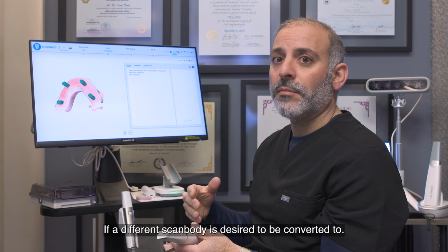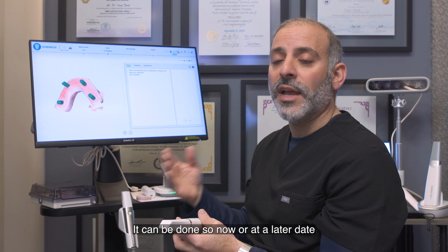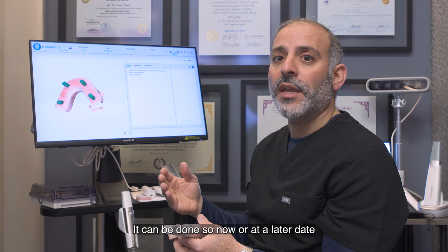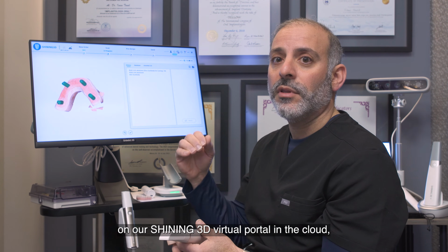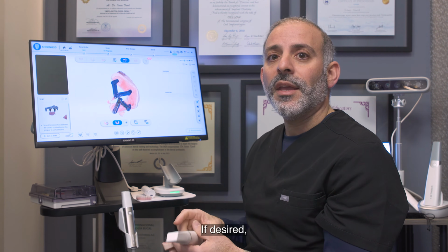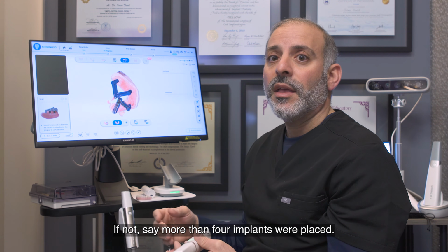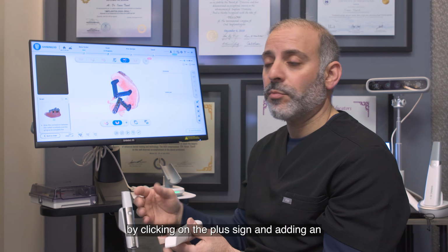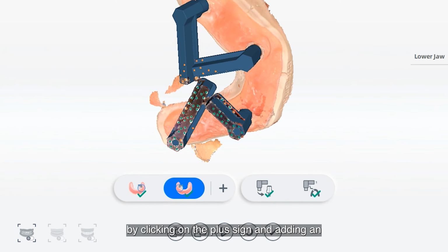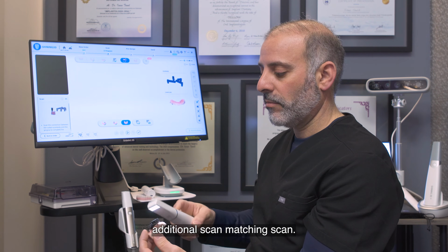If a different scan body is desired to be converted to, it can be done so now or at a later date on our Shining 3D virtual portal in the cloud. If desired, let's say more than 4 implants were placed, multiple scan matchings can be accomplished by clicking on the plus sign and adding an additional scan matching scan.